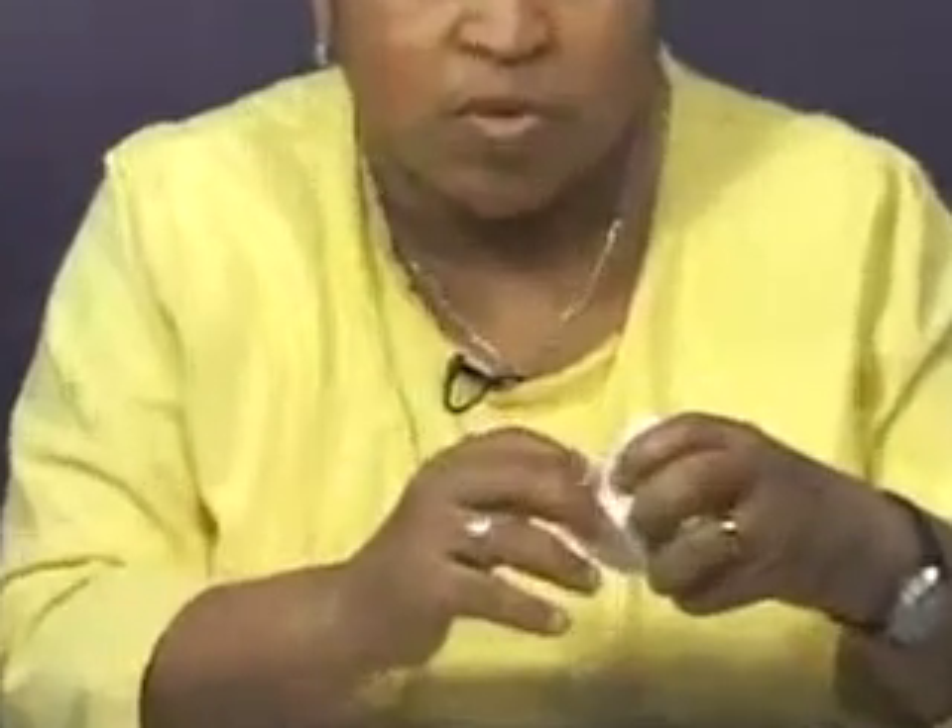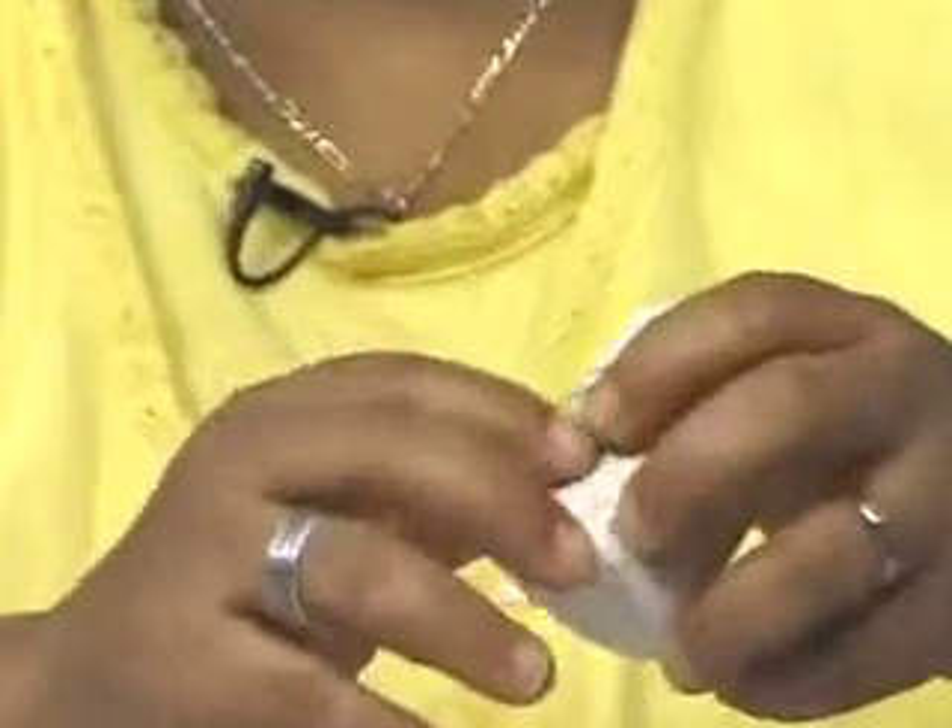The Pen Friend comes with sheets of labels. You take one of these labels and put it on an item for identification. We've removed a label and put it on this container — the label is here, and if you can't see the label, you can find it tactilely.